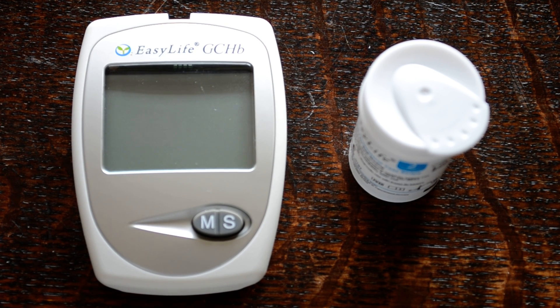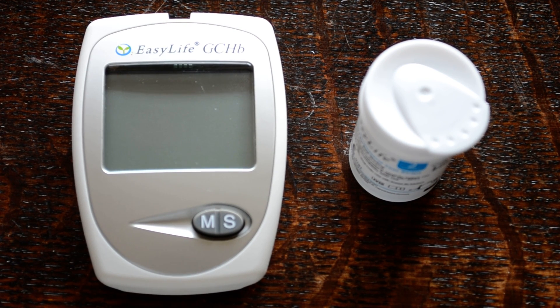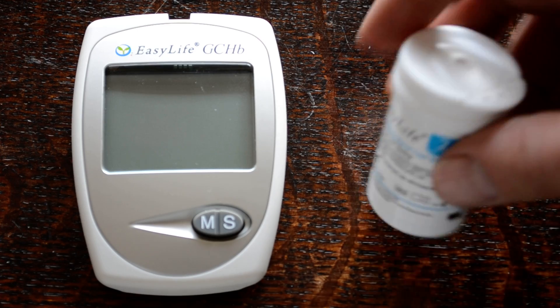It's a screen for anemia and is very useful for people that need regular blood count checks or are suffering from anemia, just to keep an eye on what's happening with their blood levels. But the one we're going to concentrate on today — one of the commonest tests for people with high cholesterol — is a total cholesterol reading using these test strips.